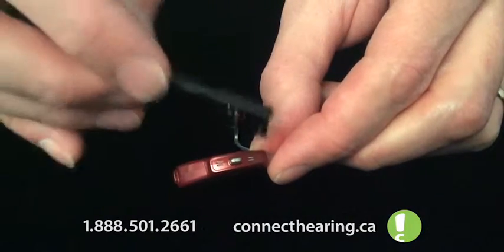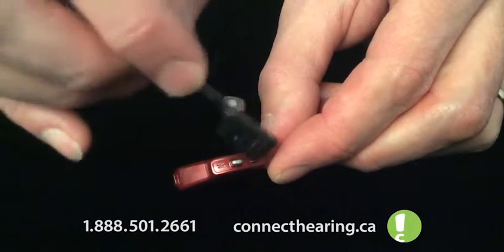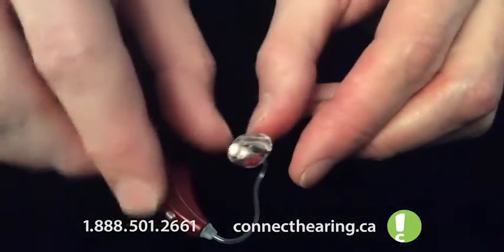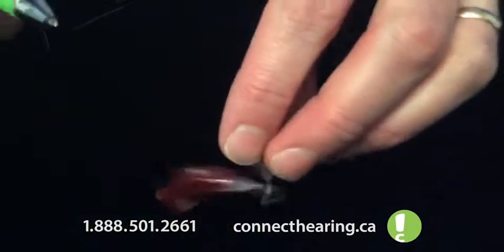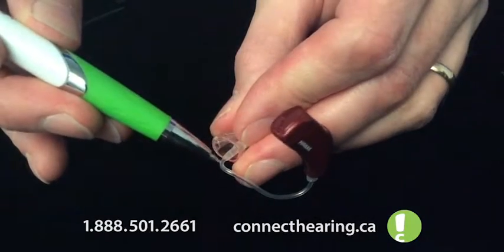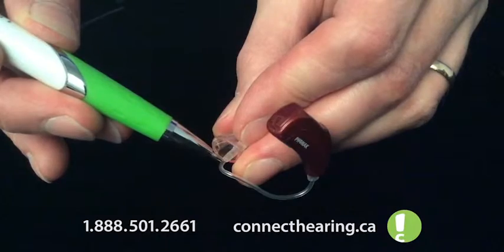Now the other spot to maintain is your microphone ports. Just kind of take the brush, kind of keep those cleaned out there. And you should be all set. Typically where the wax is going to build up is in the end or in the corner here. Sometimes this tubing will get kinked right here and it will block the sound.